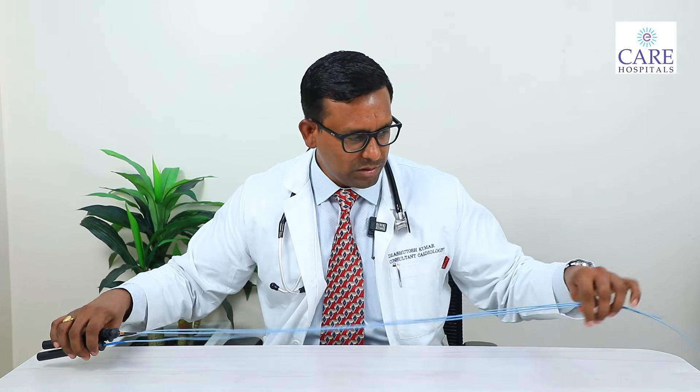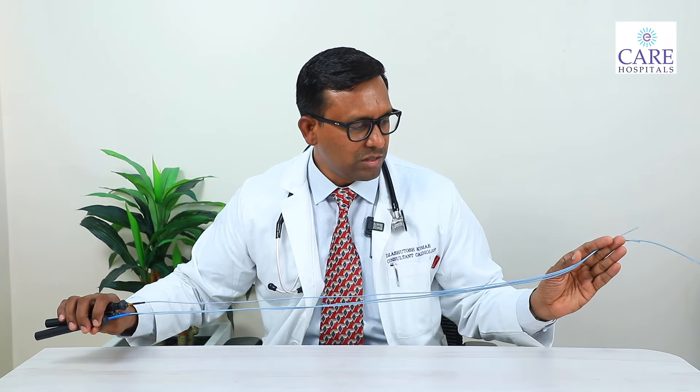These are the catheters which I have kept on the table. The veins in the legs can accommodate these catheters. It is never done via the radial route — angiography can be done through the hands, but EP study is always done through the thigh region.